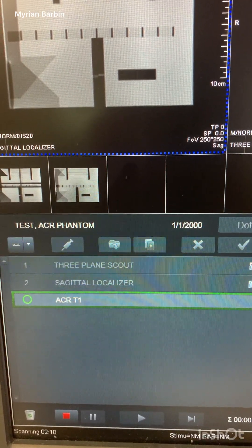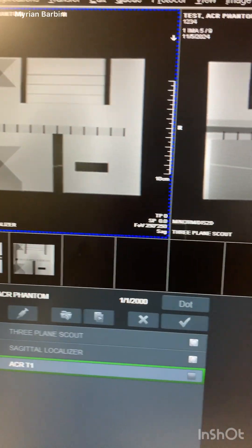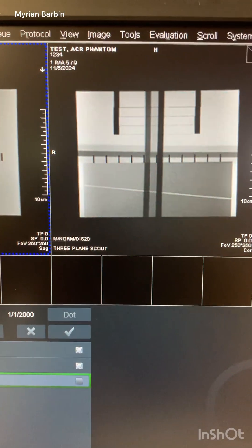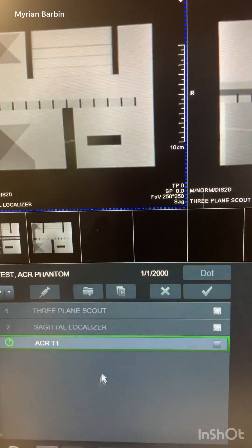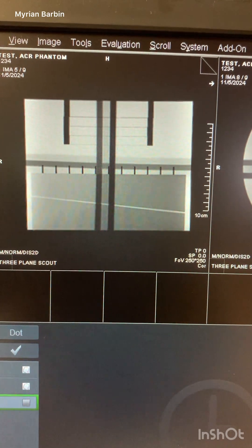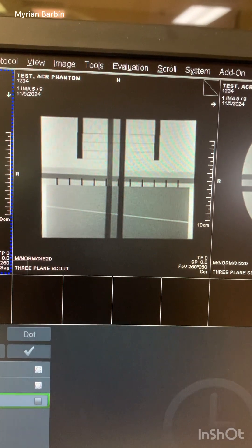This scan will take a little bit longer — about two minutes. While that is running, you can be doing other things, like looking at your QA/QC paper to review what you have to document. I'll show you how that form looks in just a moment.